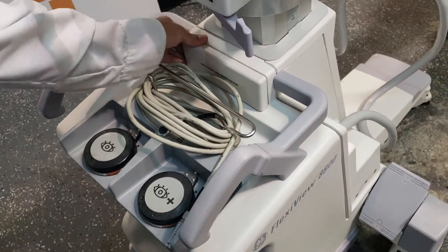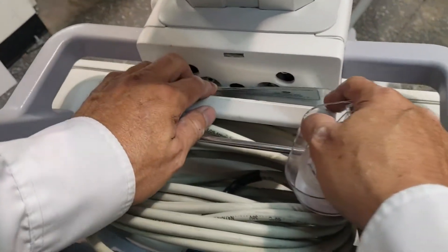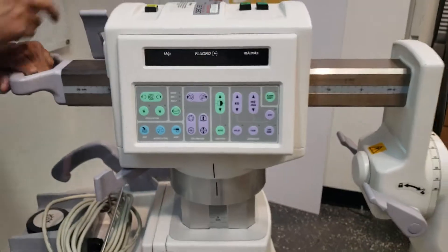Here, if you want to see all the history of the system, these stickers for certification are very important — just put them back.